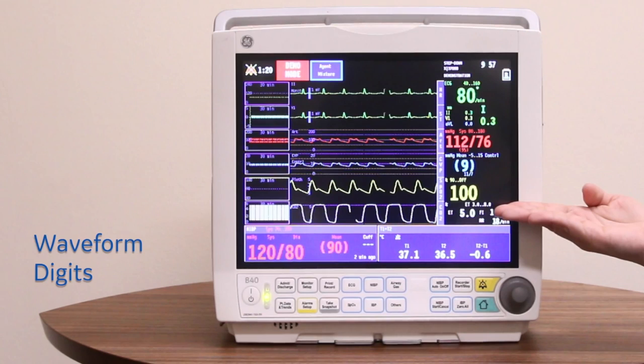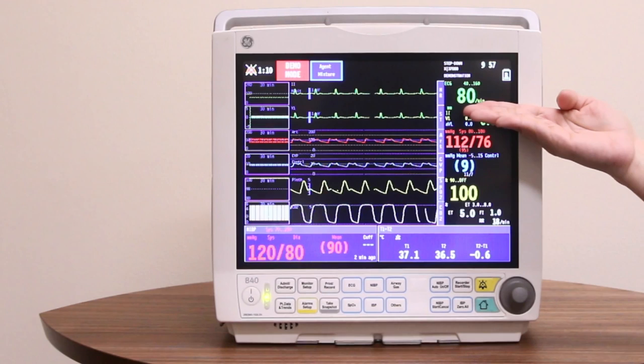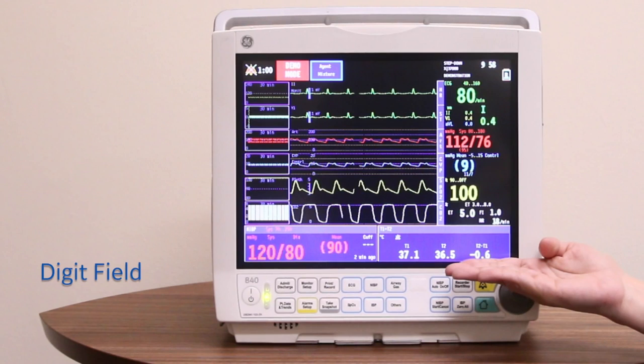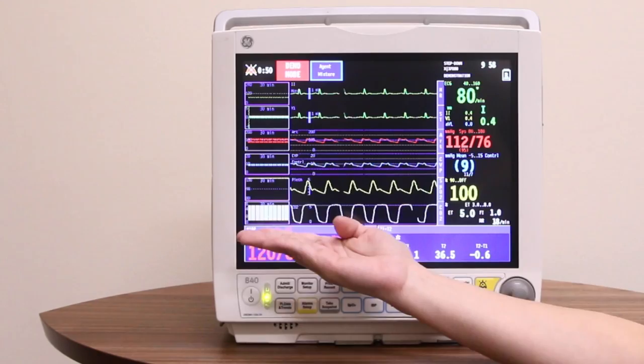Below that, you will see the waveform digits. All waveforms align with their respective parameters, where you will see the waveform in the middle corresponding to the waveform digits. You can display a maximum of six waveforms on your screen. On the lower-hand corner, you will see the digit fields — up to four digit fields can be displayed. On the left side, you will see mini-trends if activated.